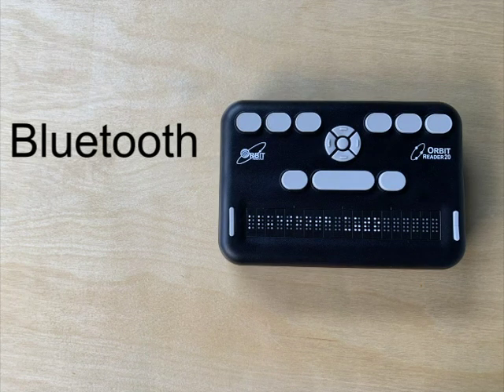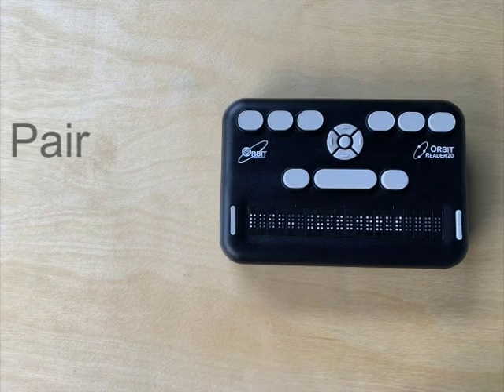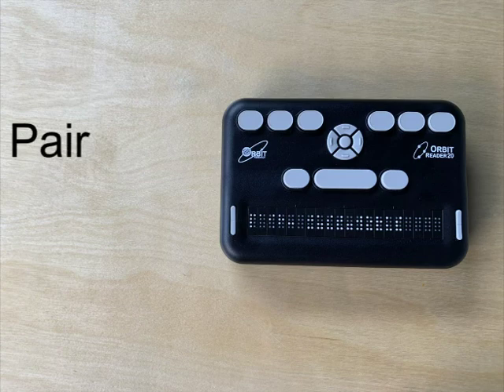Bluetooth. This lets you set your Bluetooth to auto, manual, or off. By default, this is set to auto. Pair. This lets you select a Bluetooth pairing scheme, either just works or confirm code. By default, this is set to just works.